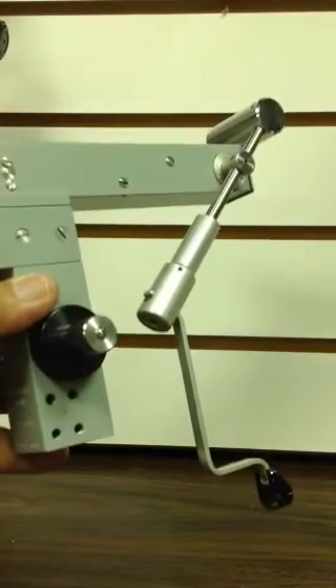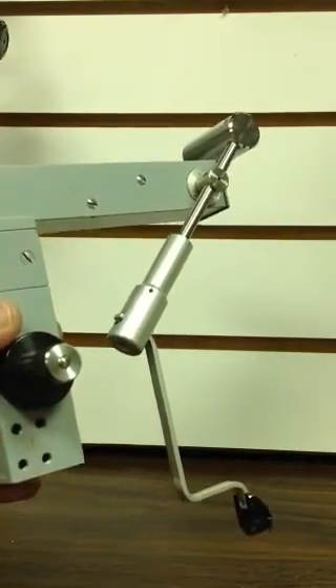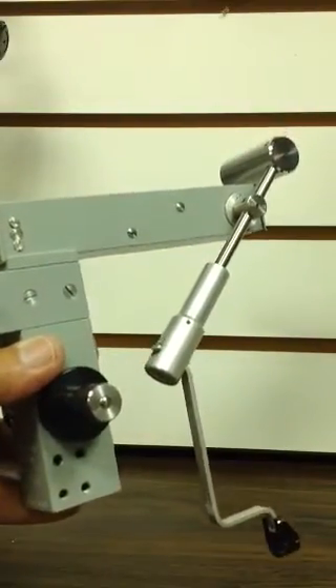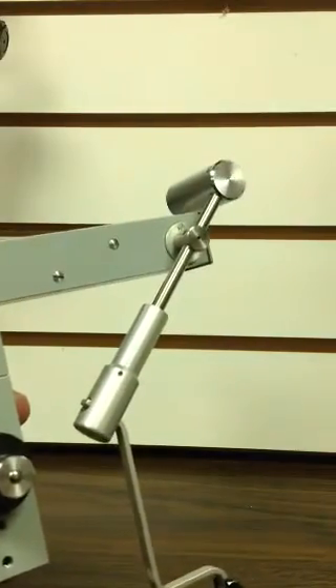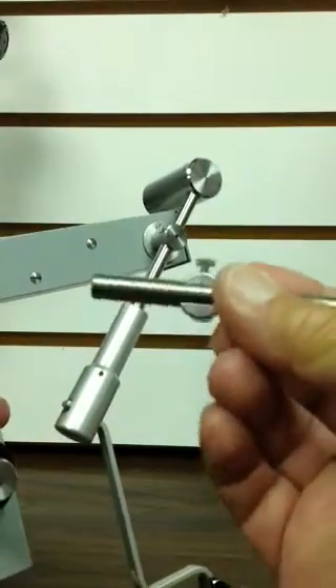The purpose of this video is to show how to calibrate an 870 style tonometer, like pictured. What I will show is how to mount the weighted system, the weights, onto the 870 tonometer.